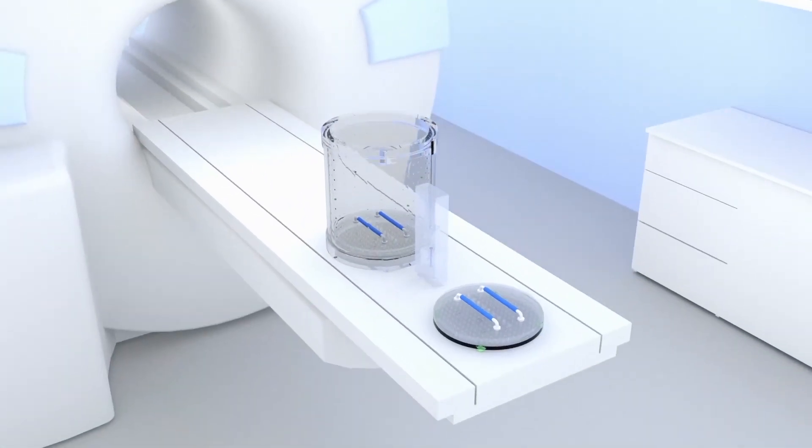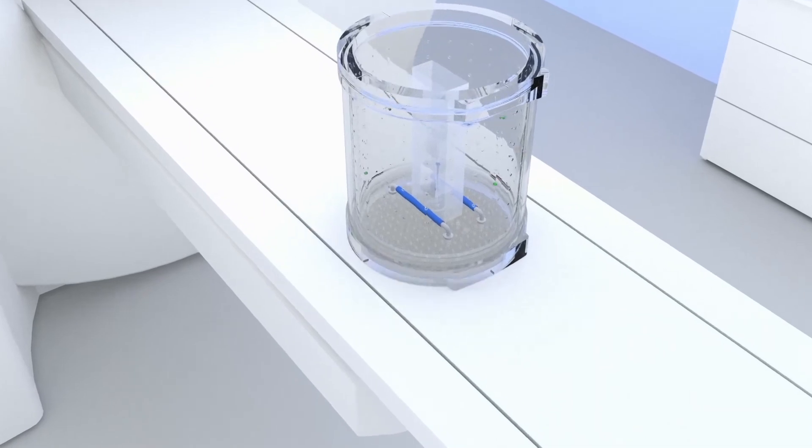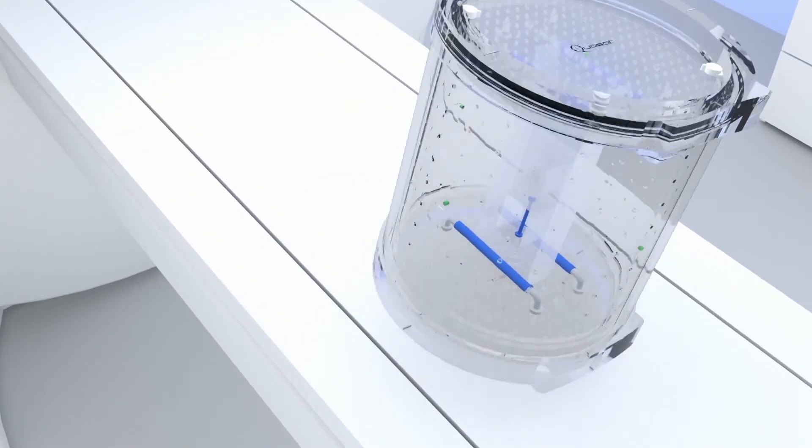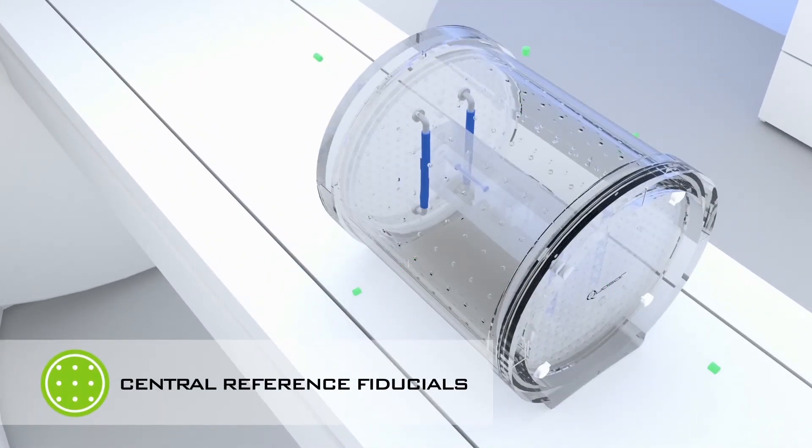The six contrastive central reference fiducials provide robust position detection when imaging distortion is high or while geometric correction is turned off.